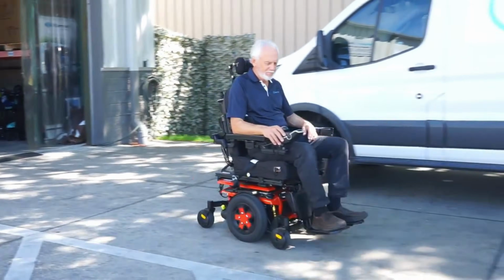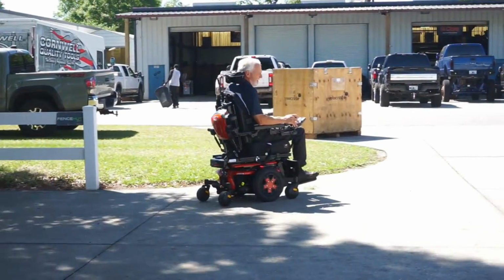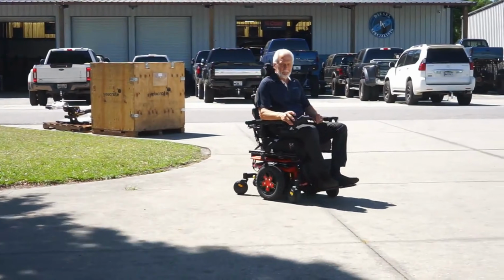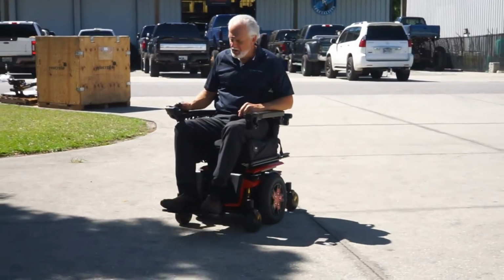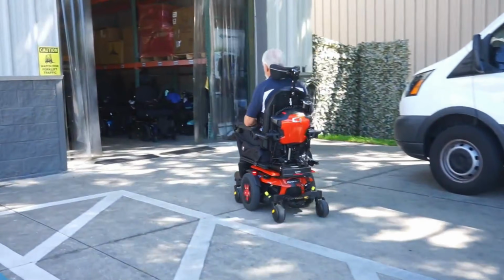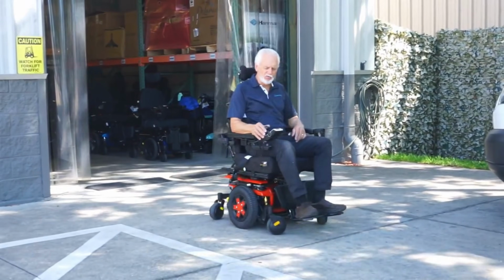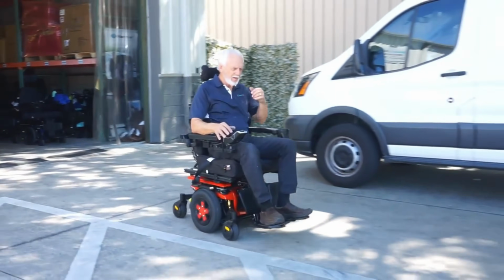The turning radius between the two units is going to be the same at 20.5 inches. And I do want to mention in this video as well, we're kind of going over the bases. So these are the bases, not necessarily the seats. I did mention the TB4 seating that is only available on the Edge 3, not the Edge 2.0. But overall, some of these specs could change depending on what seat you're putting on the particular unit.